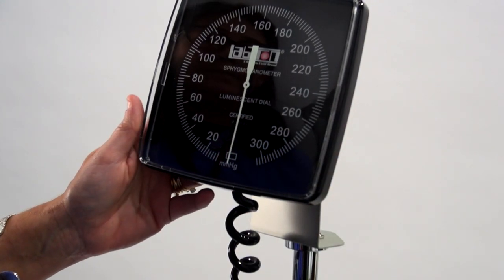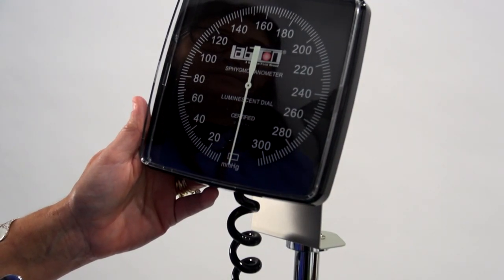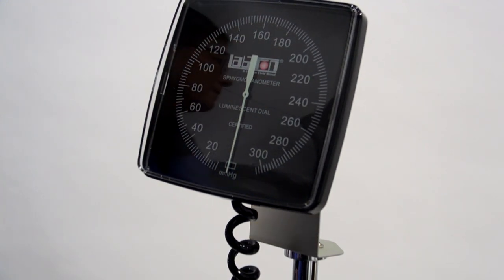The six inch gauge is based on a 110 degree swivel range bracket, making it easy to read.